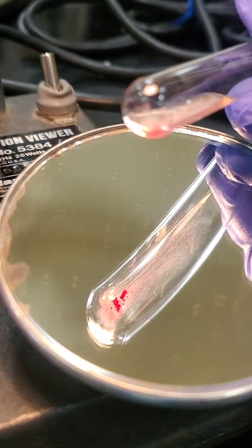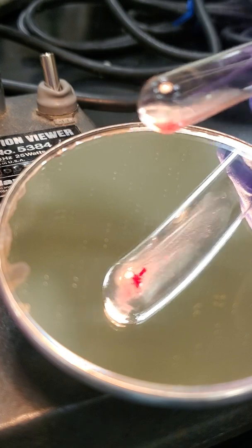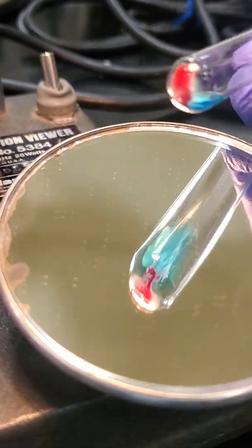So if you need to use that chart to grade these reactions, go ahead and do that and compare it to that chart with pictures on it. Okay, so this is unknown number 4, A tube, forward typing.